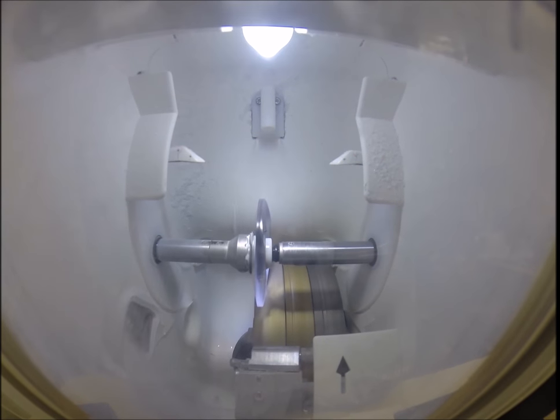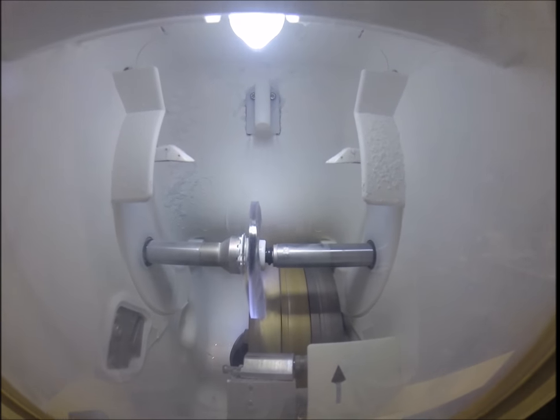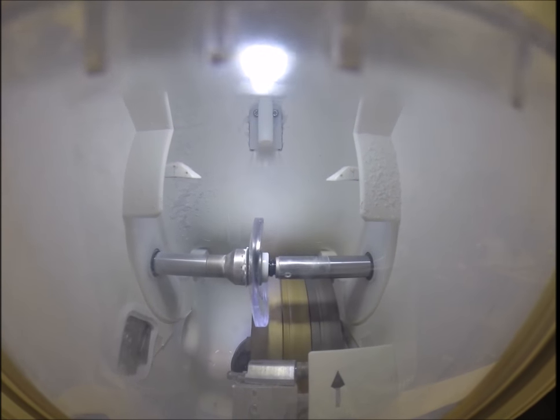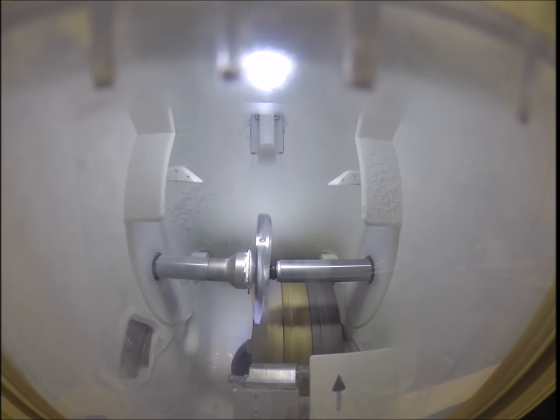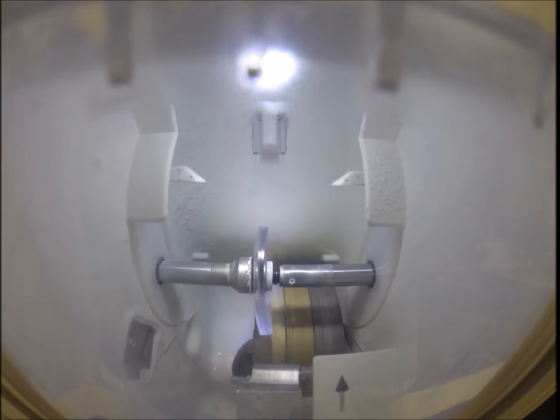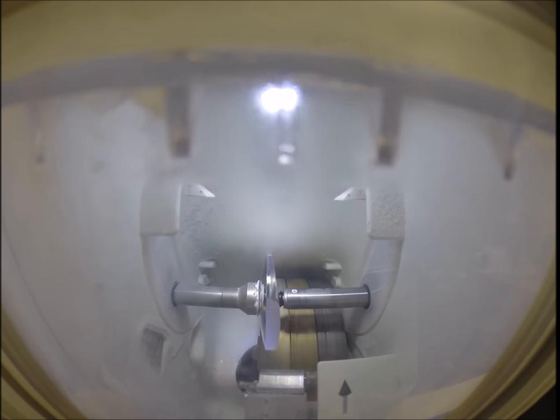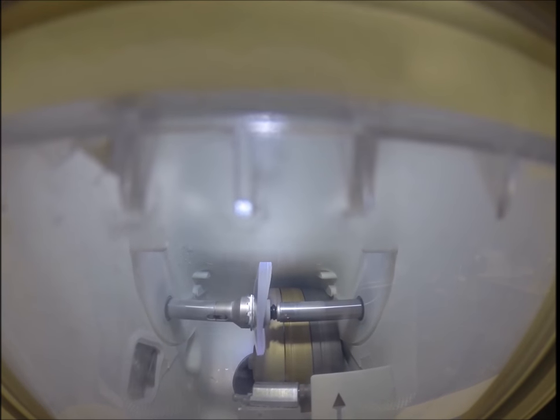You see light flickering in the background that is water there to catch the optical sawdust. Polycarbonate lenses cut dry, where plastic, high-index plastic, and Trivex lenses cut wet, meaning the water is sprayed onto the lens the entire time it's on the cutting wheel. However, water will spray onto the cutting wheel for the last 20 seconds of the cutting cycle, just to wash away any optical debris.